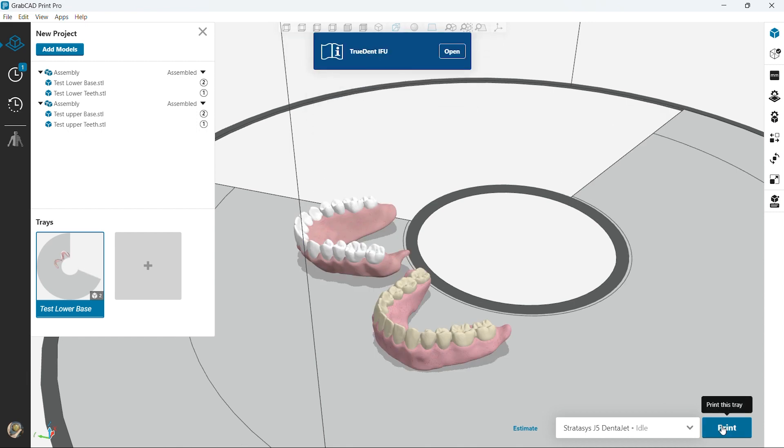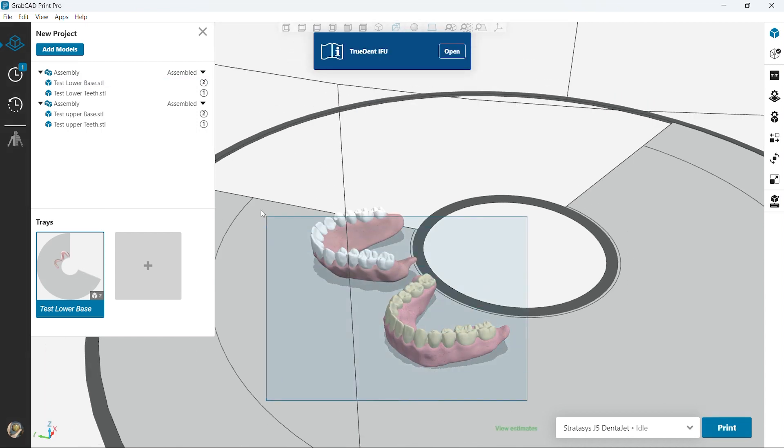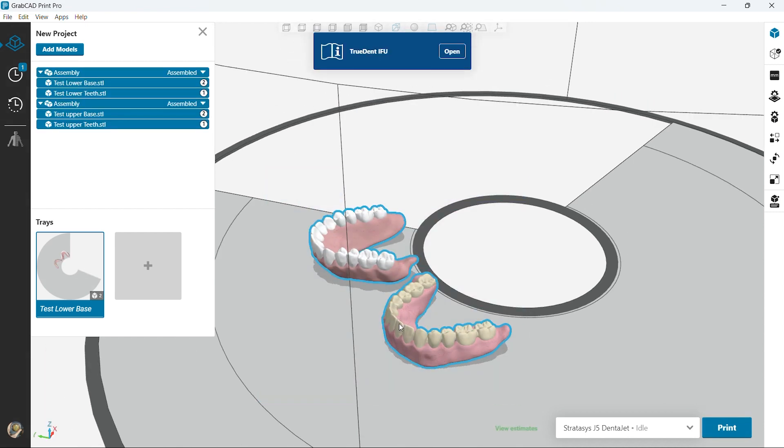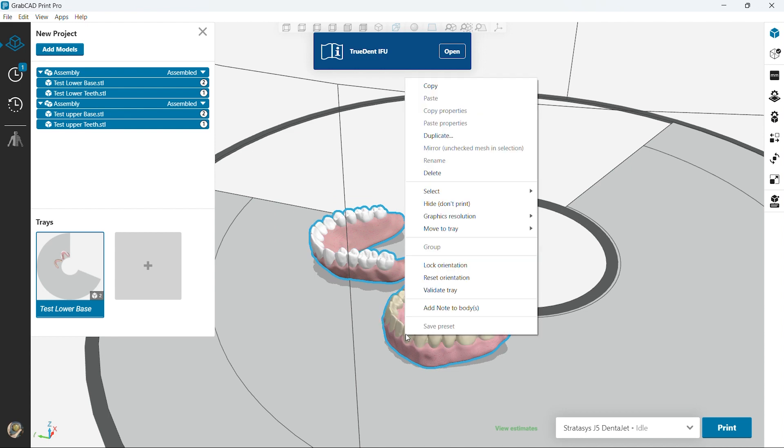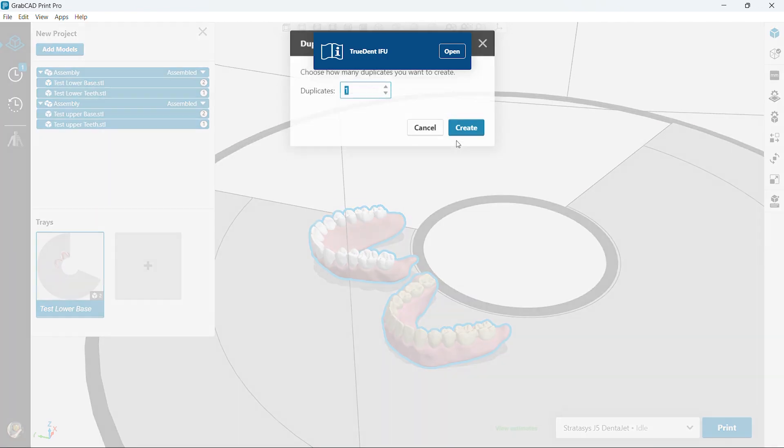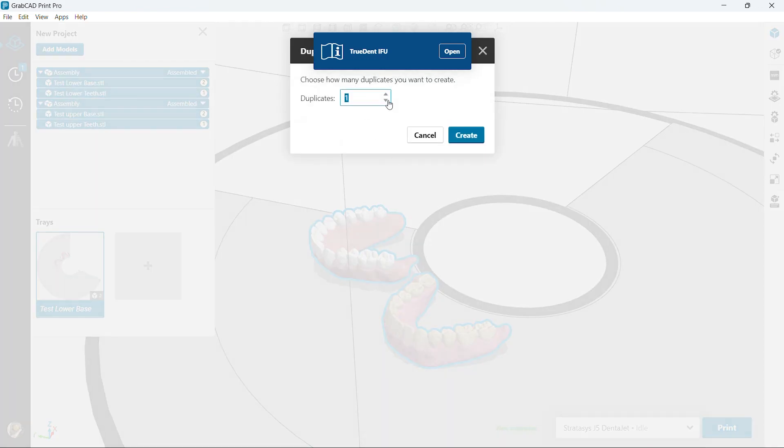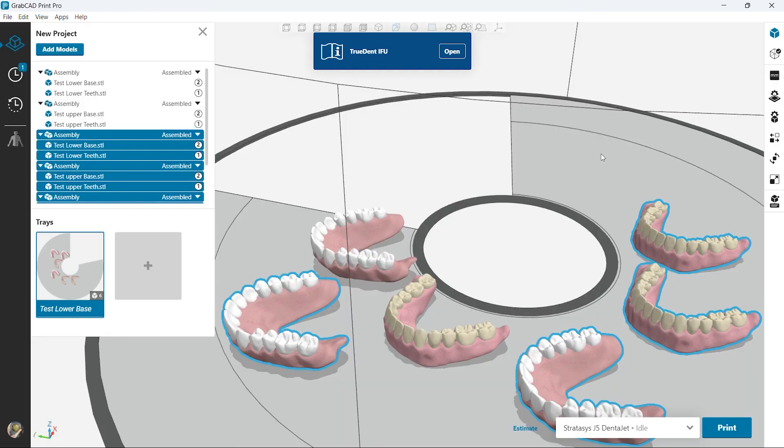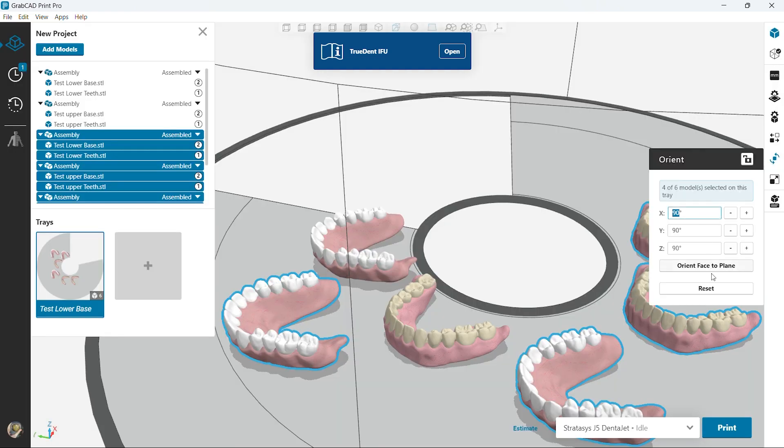But how this tray is oriented we can do a lot more and it won't take very much time at all. So let's go ahead and look at duplicating just a couple sets here.